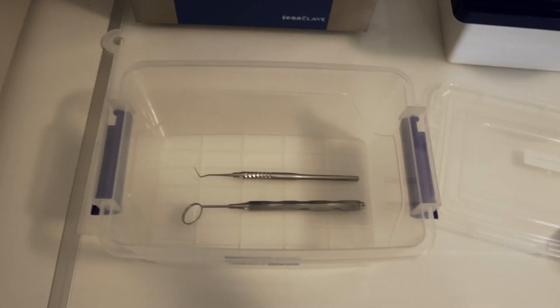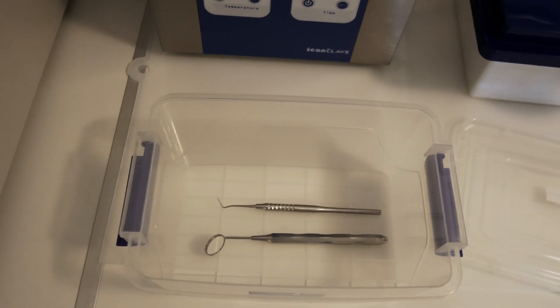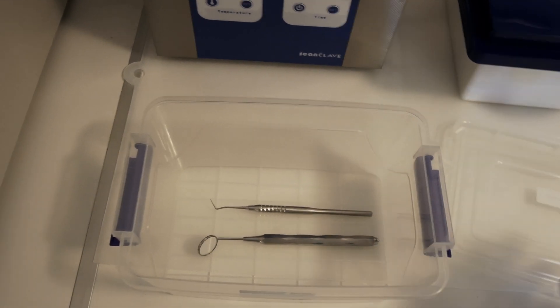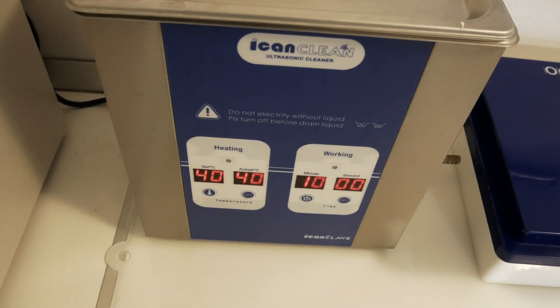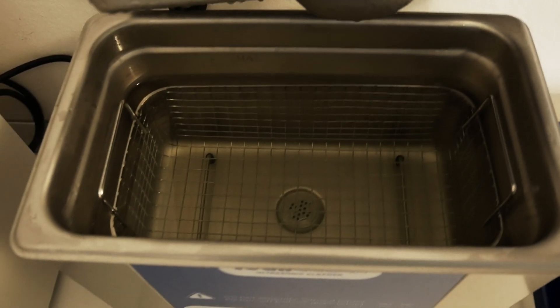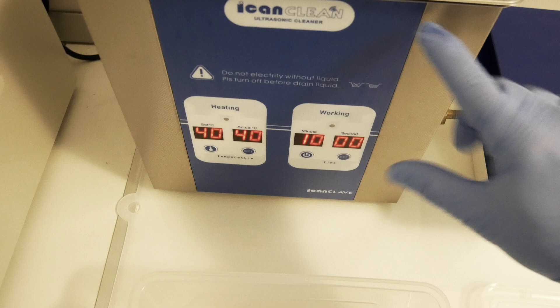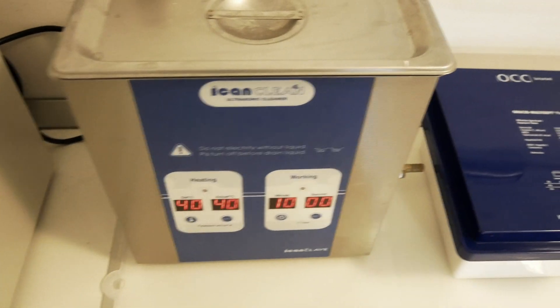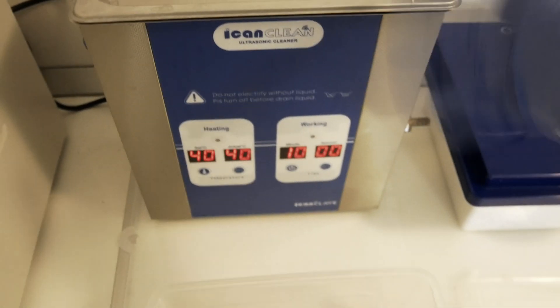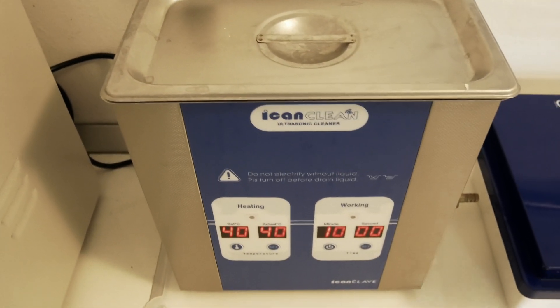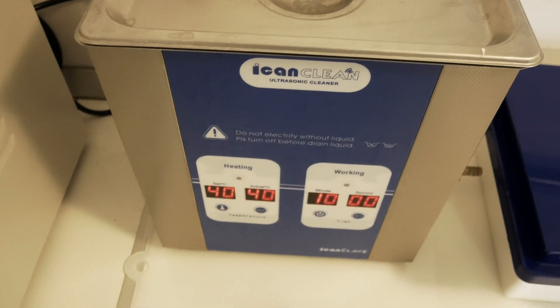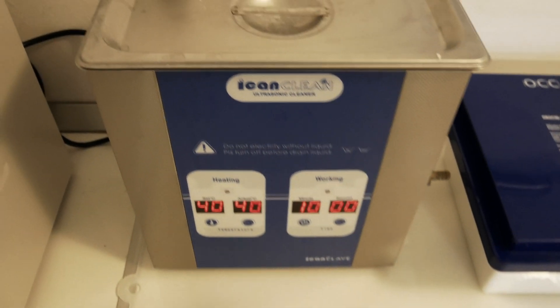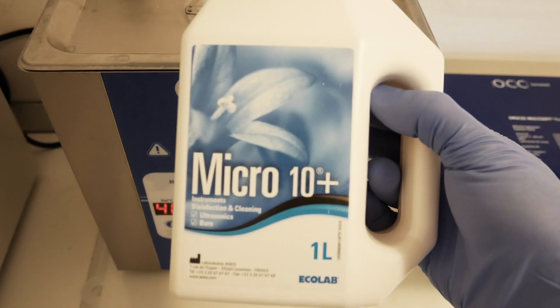Thicker gloves are more resistant to puncturing, so this will help you. Okay, the first step. I'm manually processing the instrument, so the first step is to insert them in an ultrasonic cleaner. This has a special solution with a certain concentration that needs to be written down on the device itself.